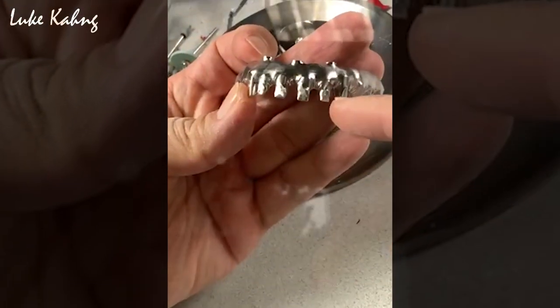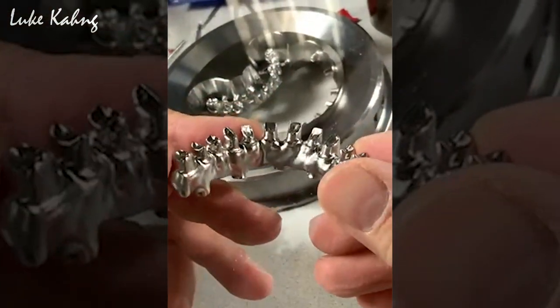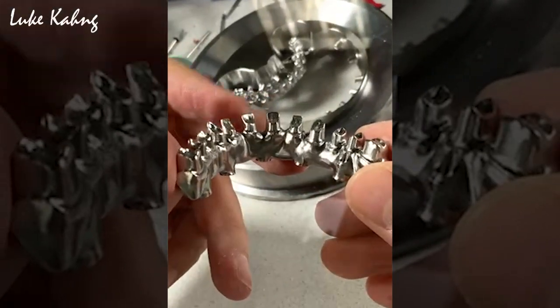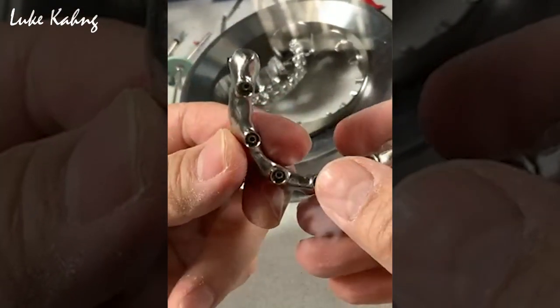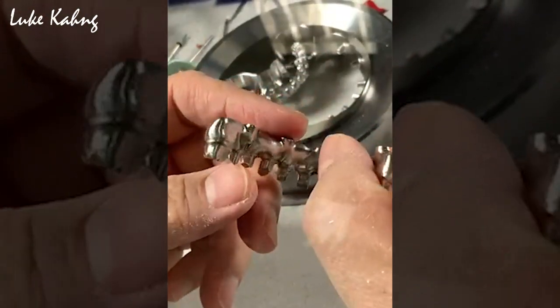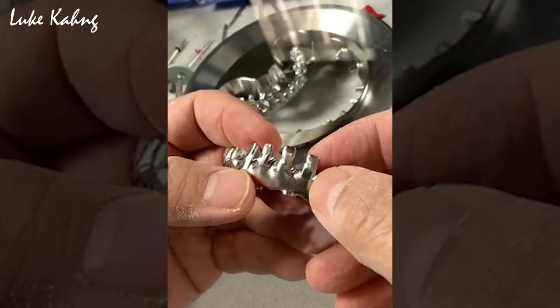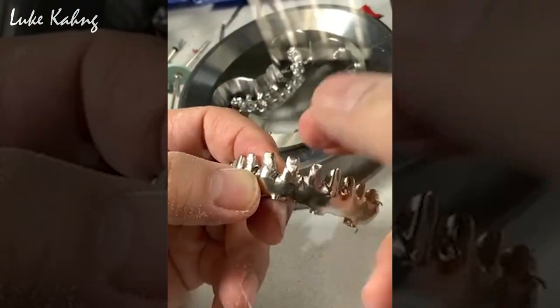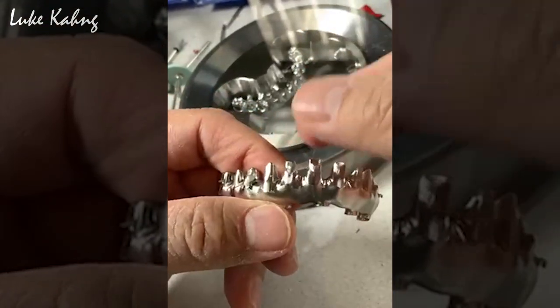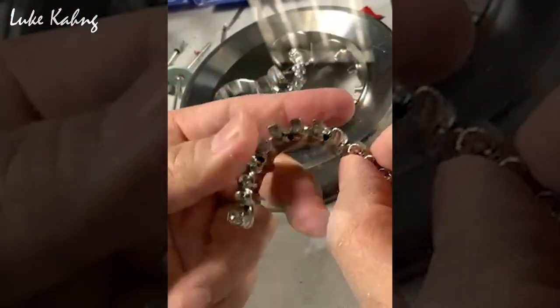I like the central, lateral, canine shape — it's really good. Quality work is excellent, especially the pontic. Really extremely clean hygiene. And then after I modify with the carbide bur a little bit, we can make the opaque, and on top of that we can make the individual, or the full-mouth splint, which is the doctor's one.